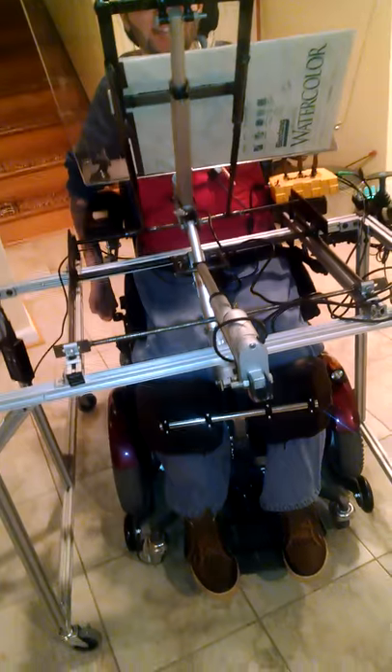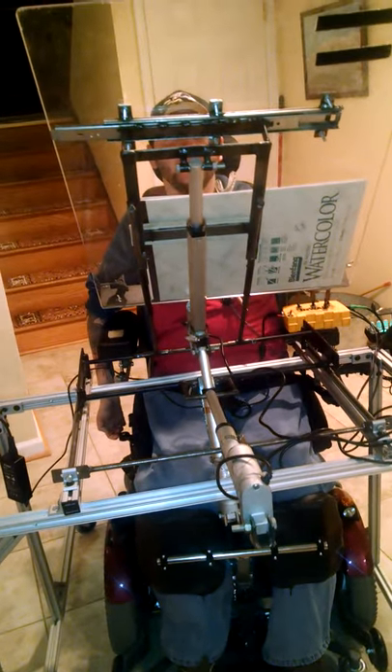Can you come up? Can you see the gears — like the back of it? Can you focus on the back of it? I go behind it and I go up and down. I'm going to have to get closer now so you can see the detail.